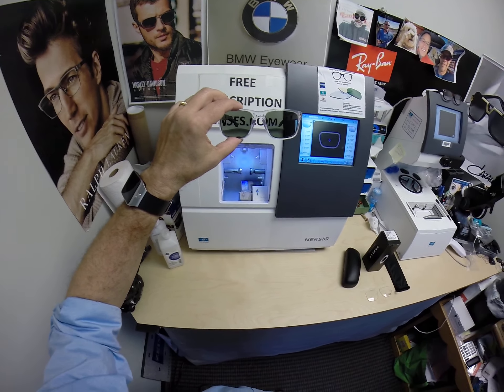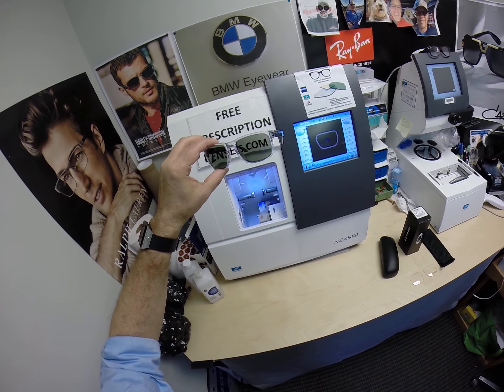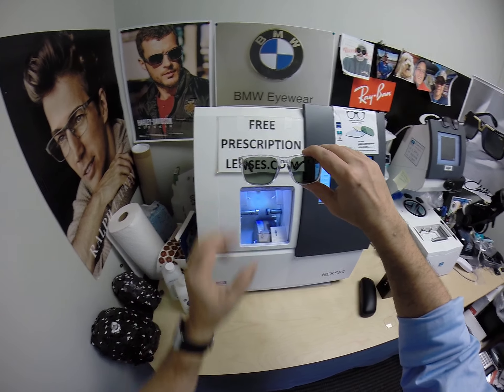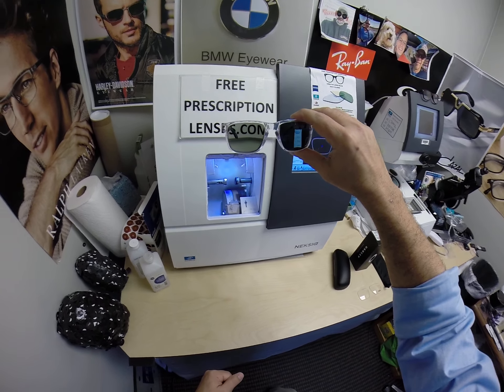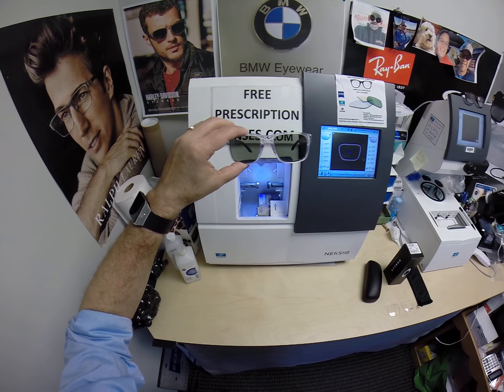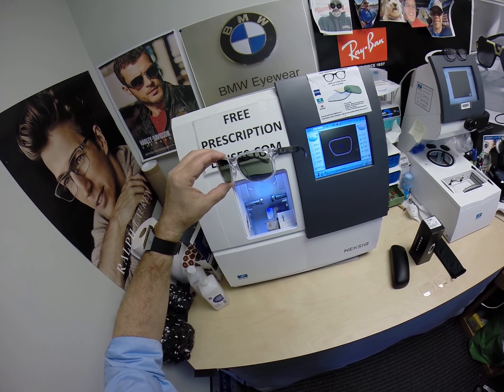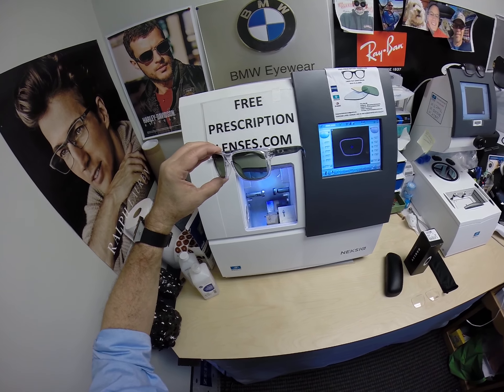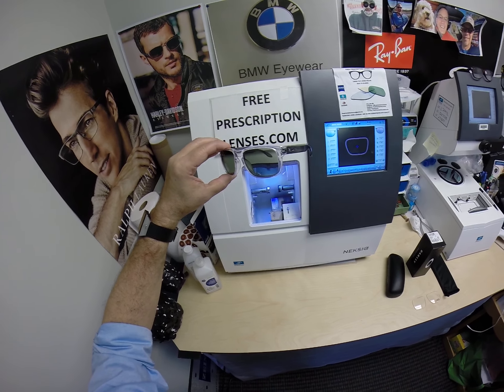The Photofusion Extra Gray, or the Essilor Transitions Extra Active Gray, Brown, and Green — and it's the green color you see here — will turn dark in a car. The regular photochromic transitions have 30 to 50% blue light protection; the Extra Active have 50 to 70% blue light protection. All of them have 100% UVA and UVB protection built into the lens, as well as a premium scratch coating. These have the DuraVision Platinum Anti-Glare, comparable to the Crizal Sapphire. Zeiss has one brand, Essilor has another, though I was able to lock in a really good deal on Zeiss.